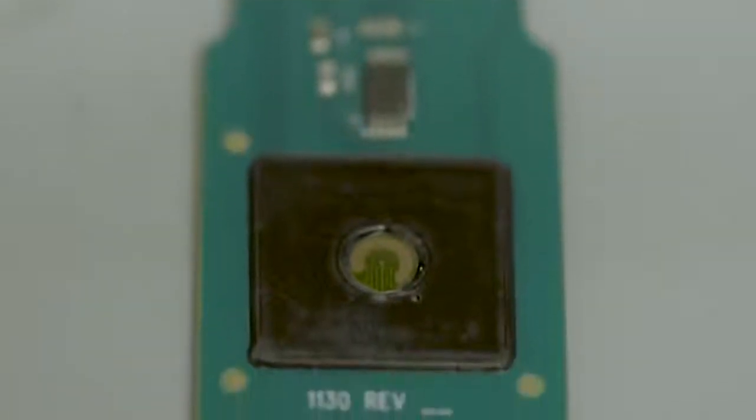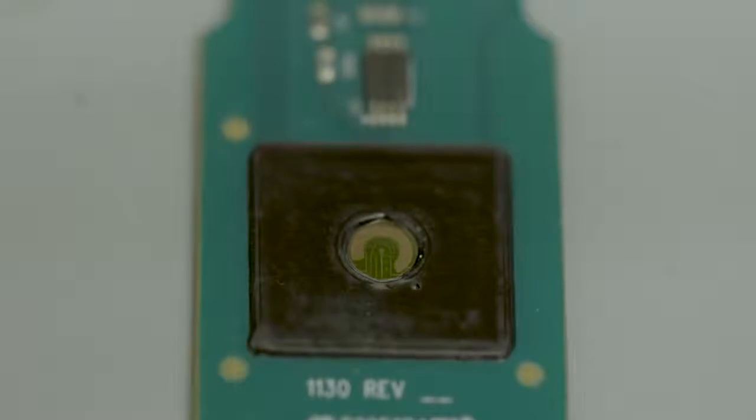This small chip has the power to detect genetic mutations that cause disease and can help doctors provide better treatments, all within minutes.